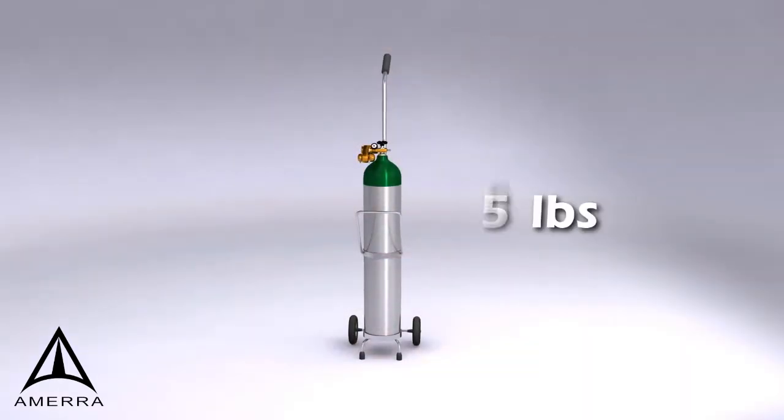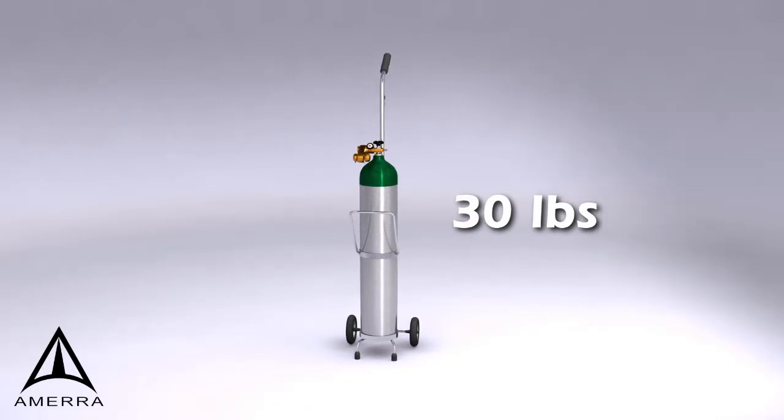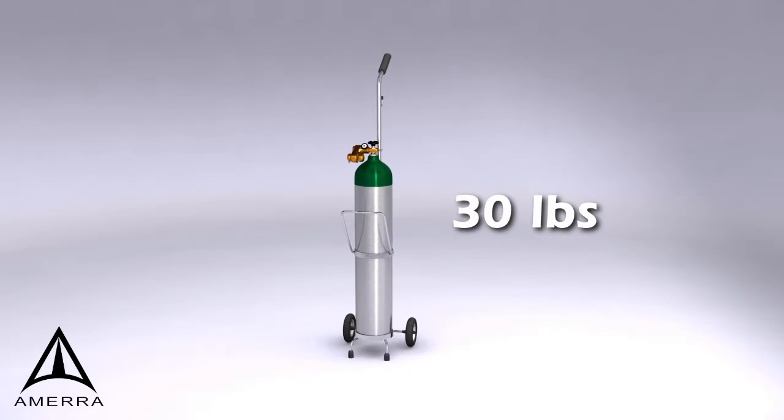Oxygen cylinder tanks can weigh up to 30 pounds and typically require a cart. They are not FAA-approved for air travel nor sufficient for overnight use or long periods away from home.